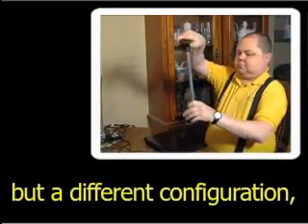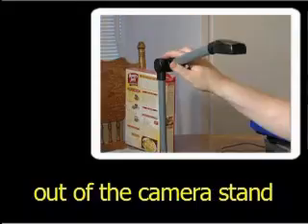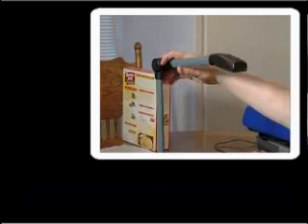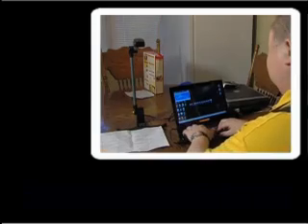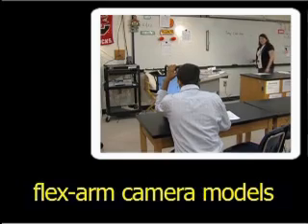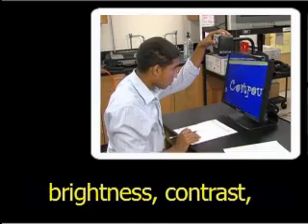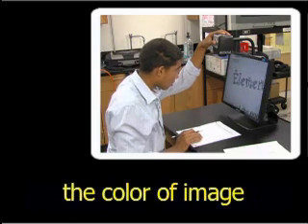In a similar fashion but a different configuration, FlexArm camera models take the video camera out of the camera stand and mount it onto a movable arm above the material to be viewed — similar to a flexible light that can be positioned over reading material, except the light is a camera. Most features of the desktop model can be found on FlexArm camera models, including zooming in and out, automatic or manual focus, brightness, contrast and color control, and the ability to reverse the color of image and background.